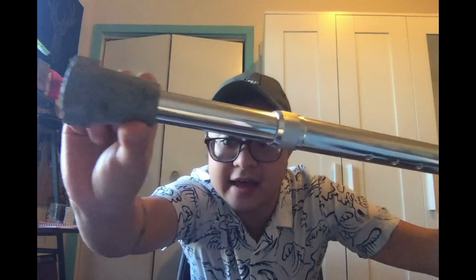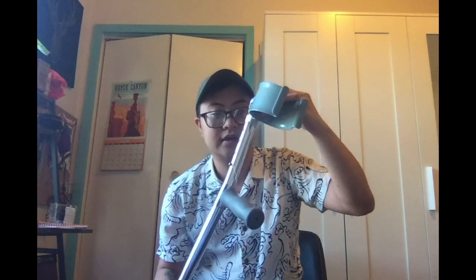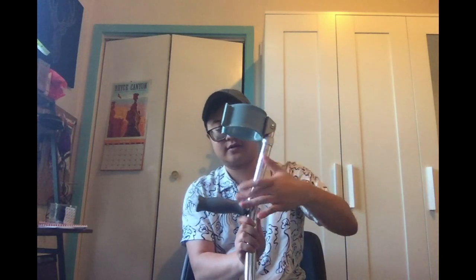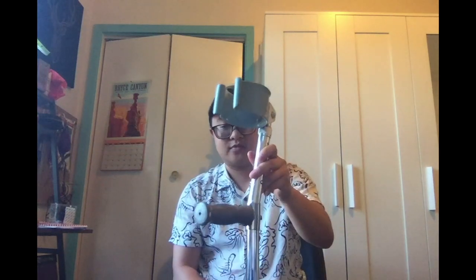I've had these for a couple years now, and the rubber does crack on those. There's a pretty uncomfortable grip and a standard front-facing cuff. These are great for a first pair of crutches when you want to dial in exactly the size and the length between your cuff and your grip and then the grip to the tip. But they are really loud — every time you walk on these you can hear all the little jangling metal pieces, and it's not a very subtle way of getting around.